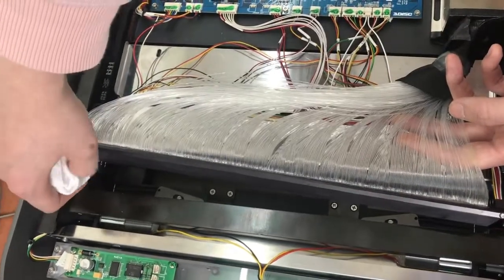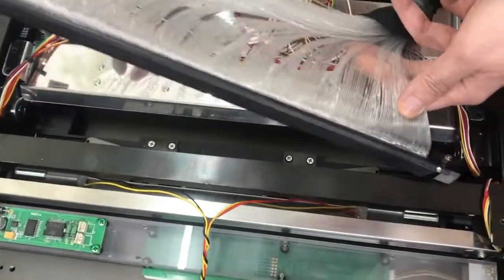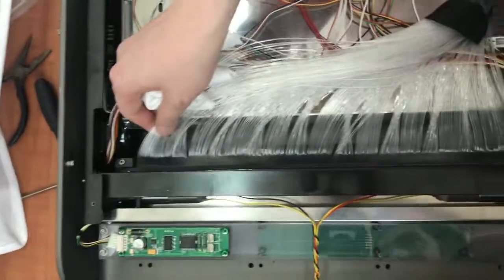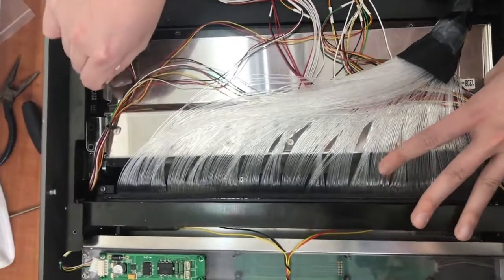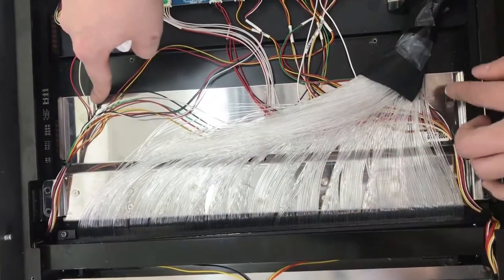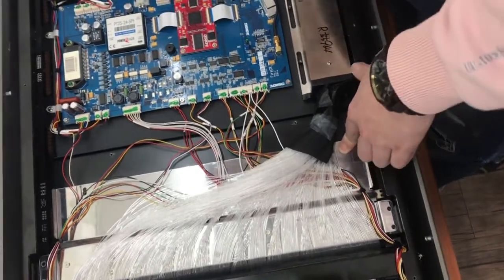Clean just one side. After that, re-push it back into place. Adjust both of the screws, and fix those two screws here also — for the erasure board, one and two. Connect the screws for the PMT as well.